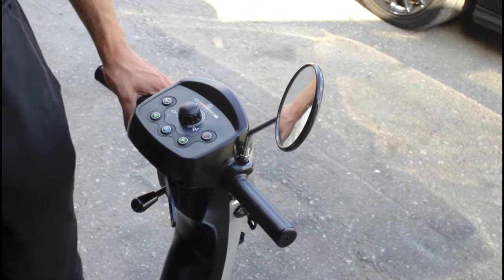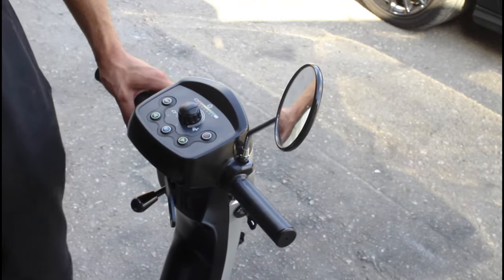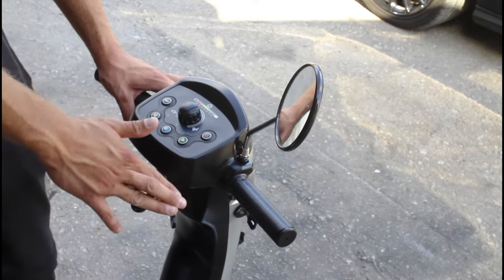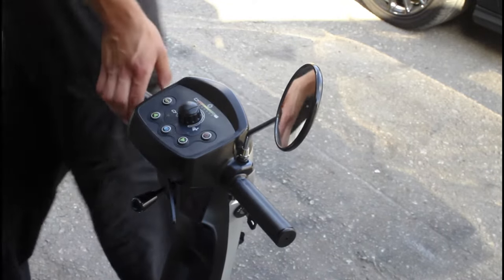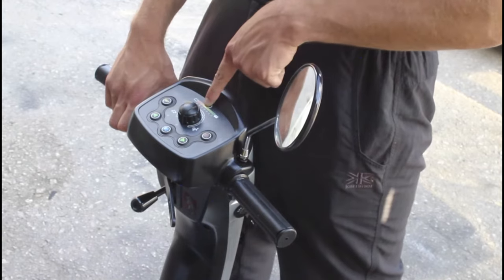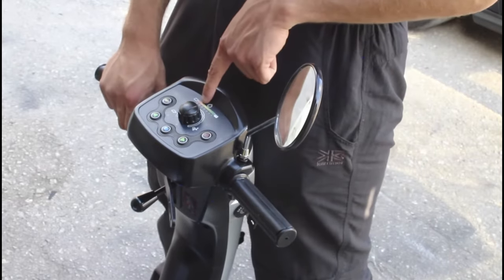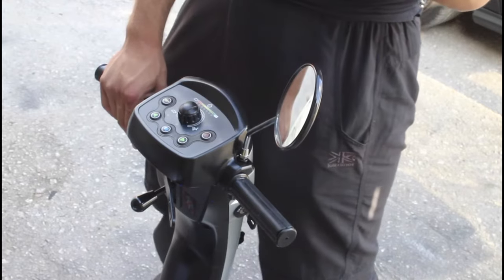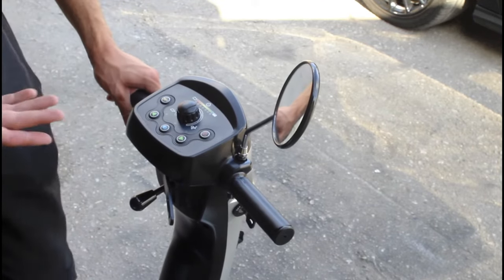Every mobility scooter — every single one — always has a total voltage of 24 volts. The only difference between models is ampere hours, which represents storage: how long it will last and how much electricity it can store. If these were bad batteries we'd probably be on bar three right now, but we've only gone down one bar after about four minutes — bad batteries would keep dropping to bar two, three, and eventually cut out.